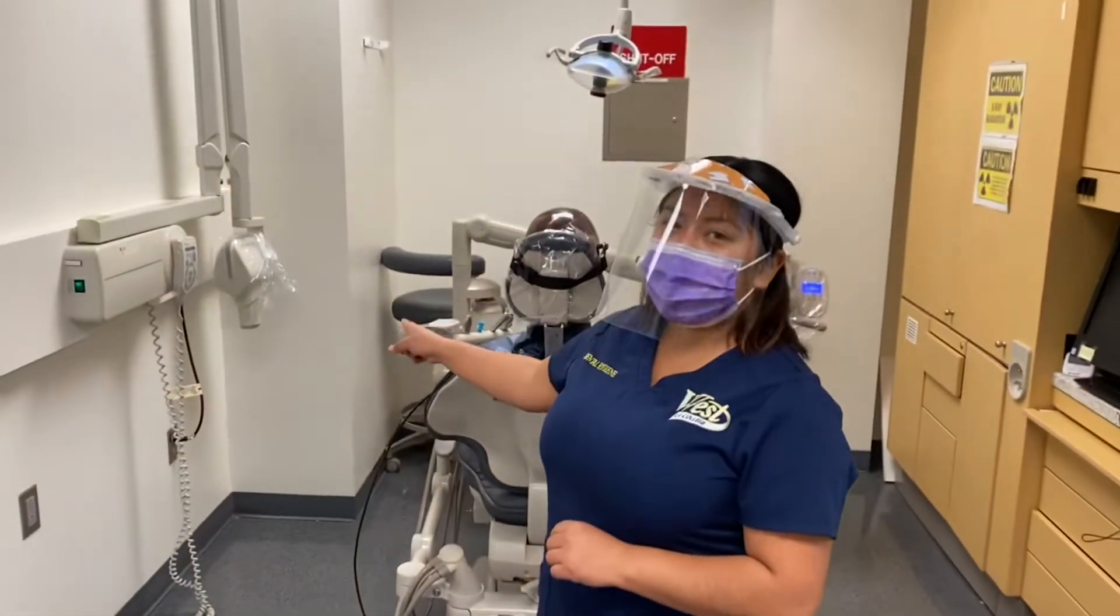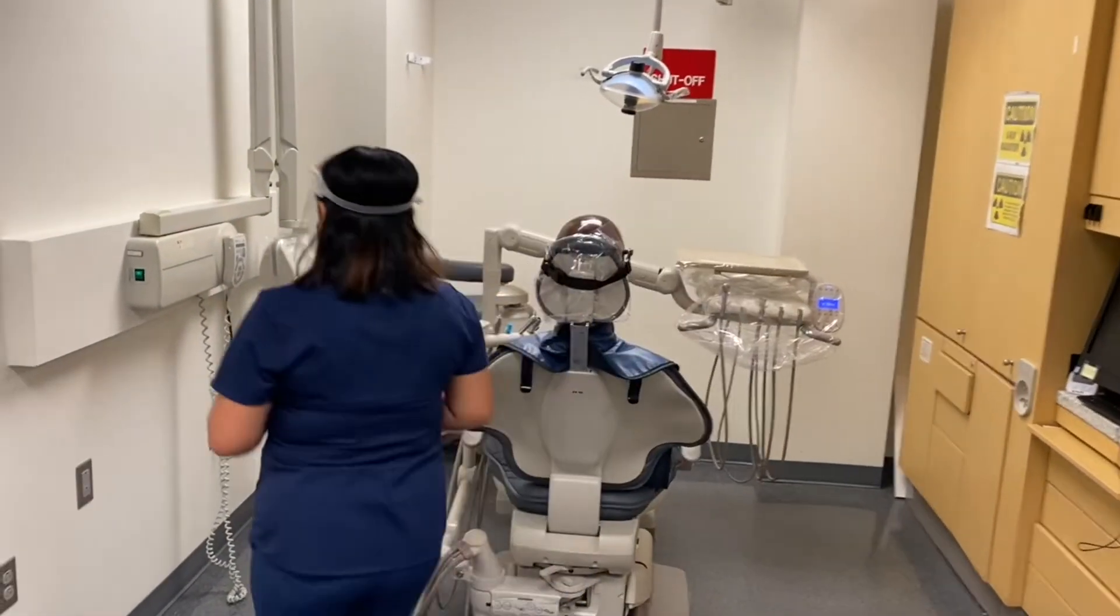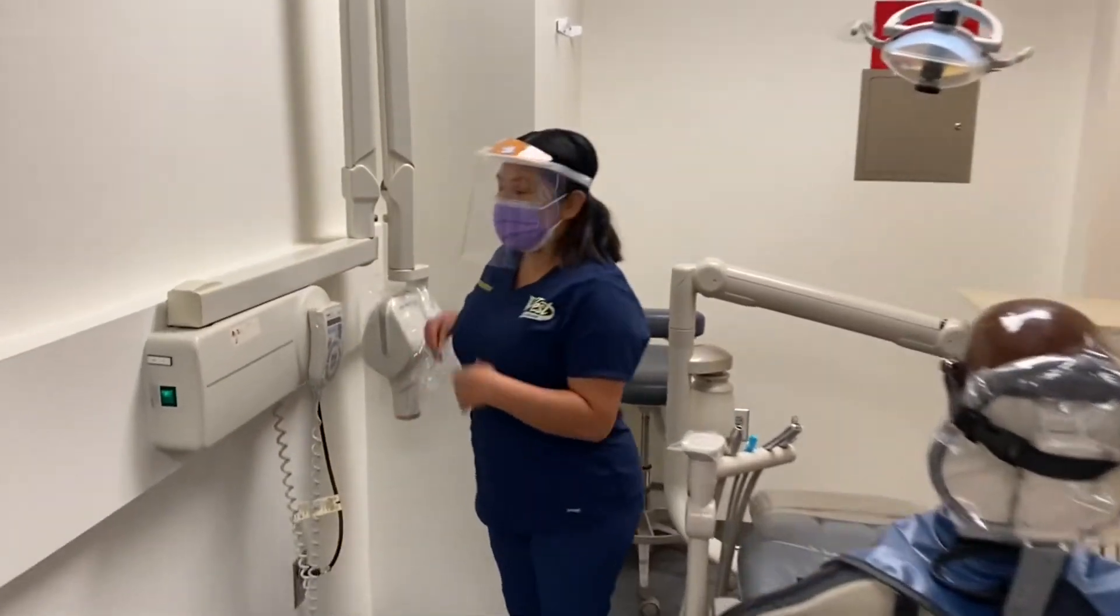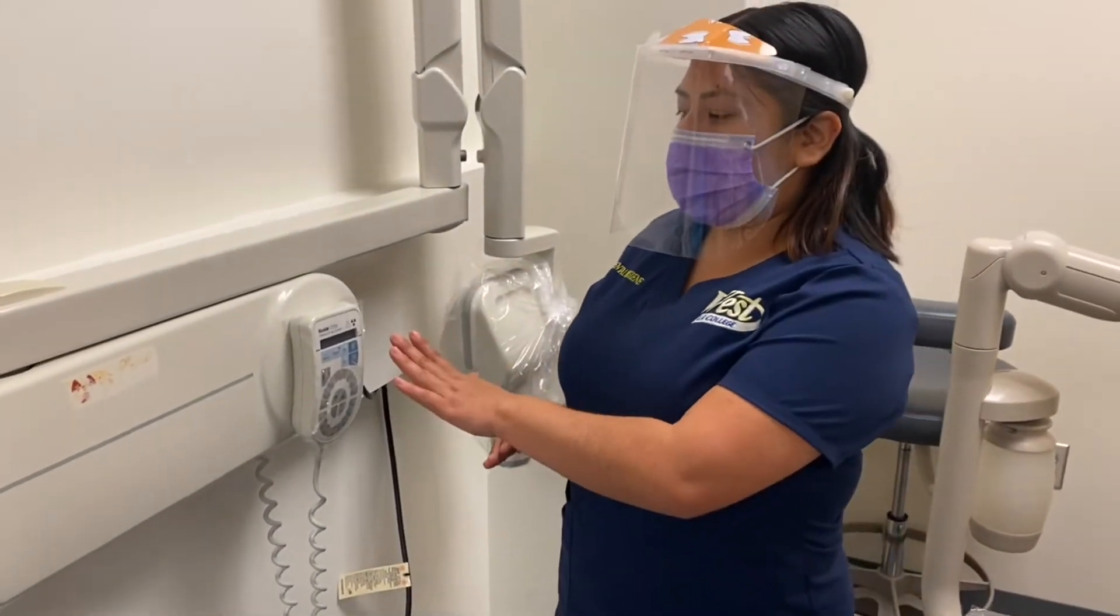Alright, moving on to our x-ray machine here. We want to make sure we have it in the right settings. Starting with our tube head, we want to make sure it's barriered, also our remote.